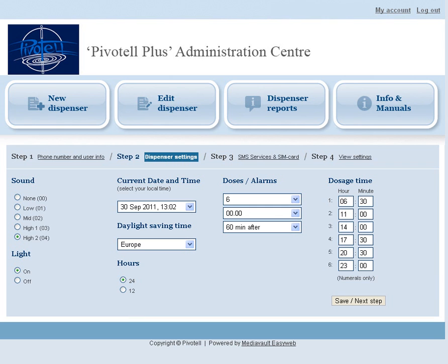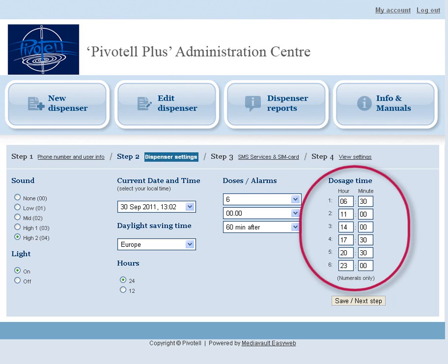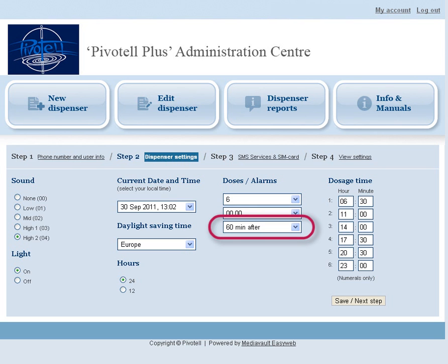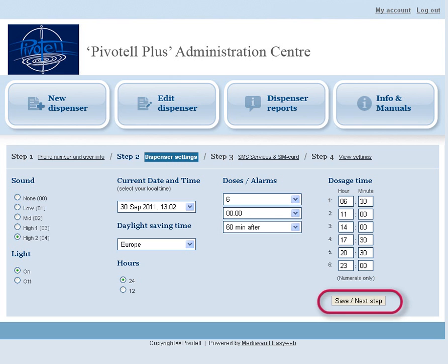Next, enter the doses and alarms. Up to 28 doses and alarms can be programmed per 24-hour period. Select the number of doses and enter the required medication times in each field. Before allows the medication to be accessed before the programmed alarm time by rotating the dispenser through 180 degrees twice. If this feature is not required, set to zero — we recommend this if the user is at all confused. Then set the length of time the alarm will continue to sound if the medication is not dispensed.